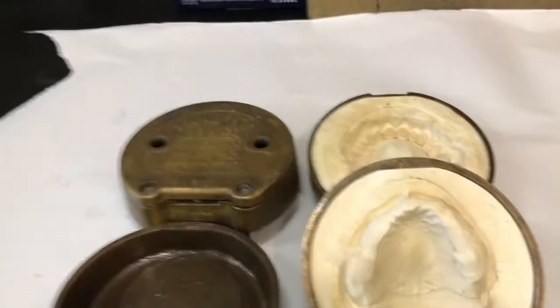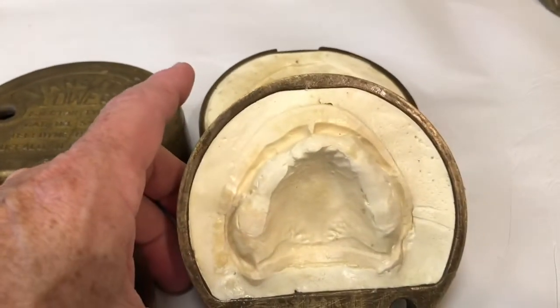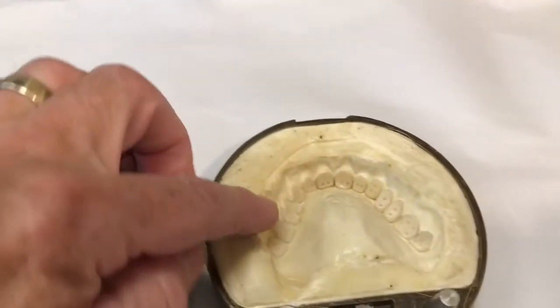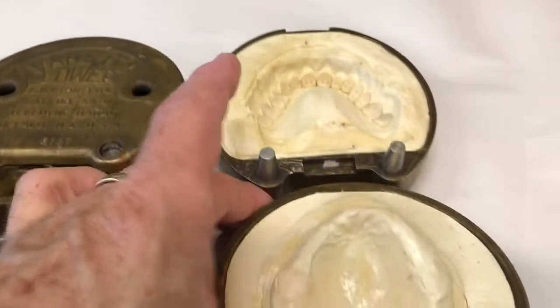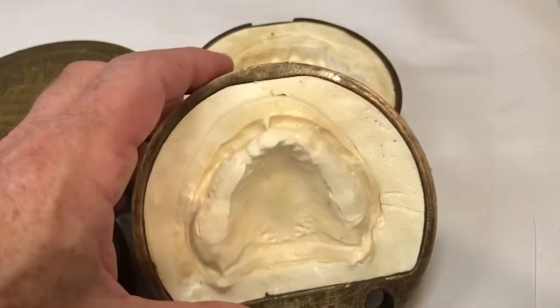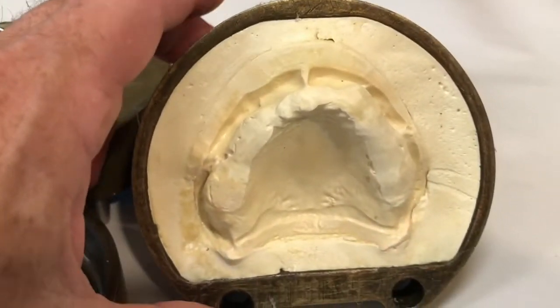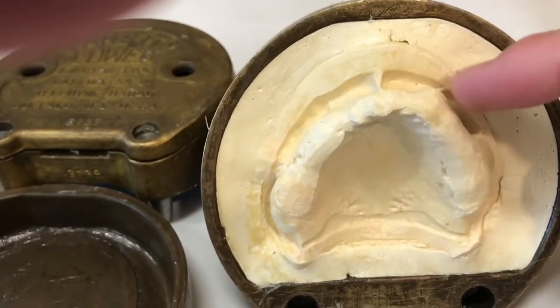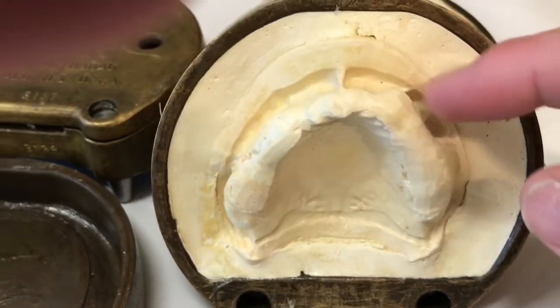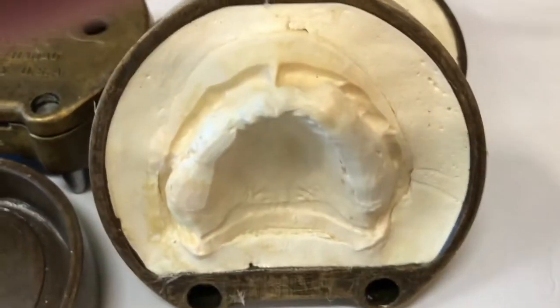I've flasked and boiled out this waxed-up immediate denture after all the festooning was done. This is where the original wax-up was, with the denture teeth coming out of it for the second pour. What you're seeing here is the underside of those teeth — that's how it all went together before we boiled out and removed all the wax. Now I've got a nice bare cast here that's clean, no wax on it. I'm going to duplicate it for a surgical guide. Because I did some extra reduction in the large undercut area over the canine eminence, I can trim more now or smooth out and remove large undercuts if necessary.